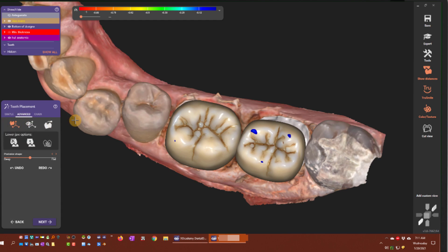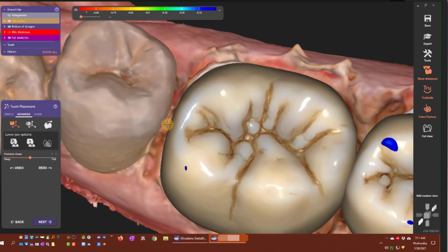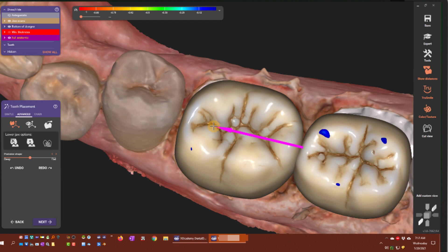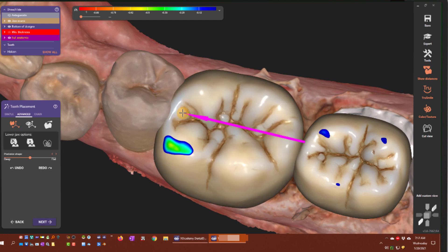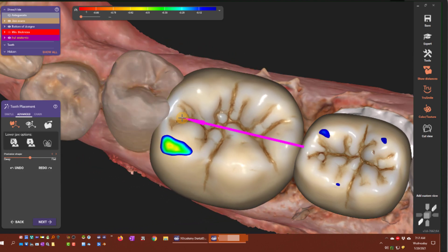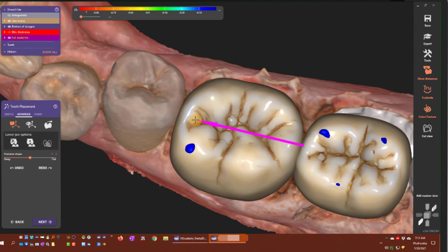I typically keep the left option — the tooth axis when scaling. I have this open contact on the mesial and I want to scale the tooth going mesial, but leave this distal contact right here — let's say I like this distal part. I hold the Shift button and you can see a purple arrow appears, showing it will pull the tooth to the distal, leaving the mesial static. I don't want that, so I move my cursor toward the mesial and the arrow shifts — I want to keep the distal surfaces and only scale toward the mesial. Now when I scale, you can see it holds that distal static. It's still scaling, but it holds that distal contact area. So that's great if I only want to scale to the mesial — it leaves the distal in place.